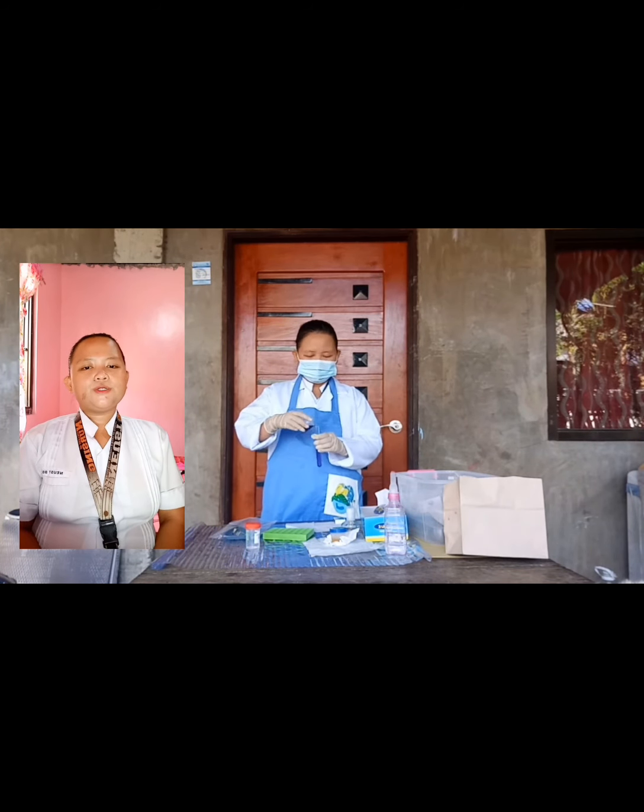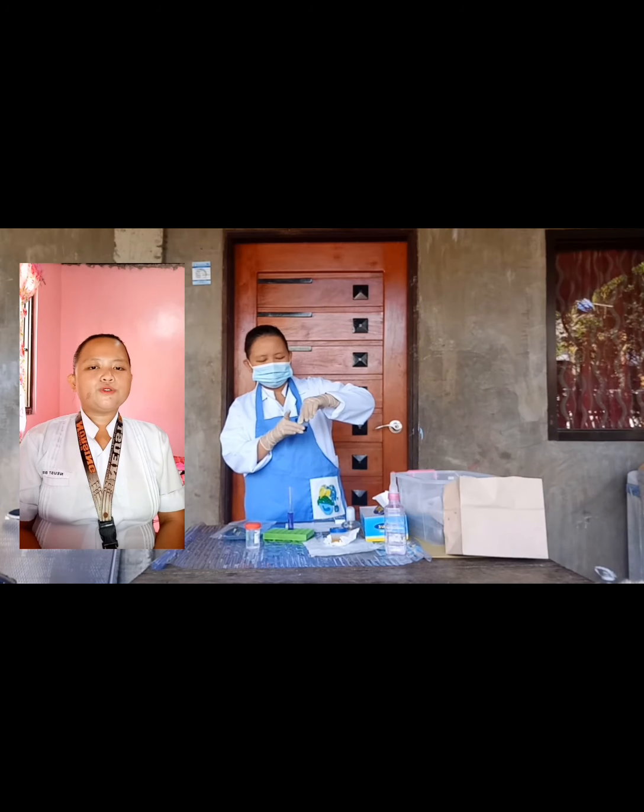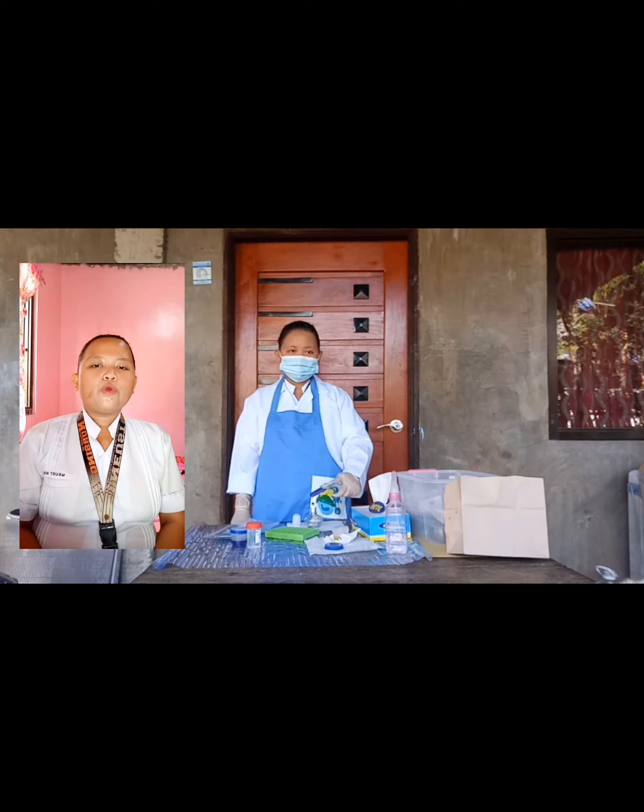Put the Benedict solution in the measuring cup and obtain 5 ml in total. Fill the test tube with the solution, then heat the solution using the alcohol lamp for 2 to 5 minutes. Hold the test tube using the test tube holder, facing away from you. Wait for the solution to cool down and observe for changes in color. After testing the Benedict solution for purity, add 8 drops of urine specimen into the solution. Heat the mixture for 2 minutes, then allow the mixture to cool down and observe for changes in color.